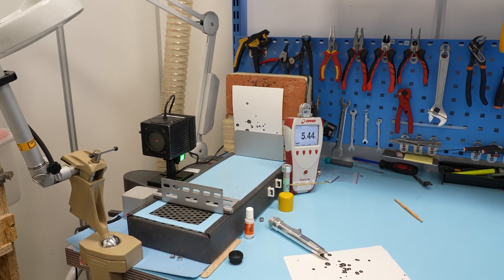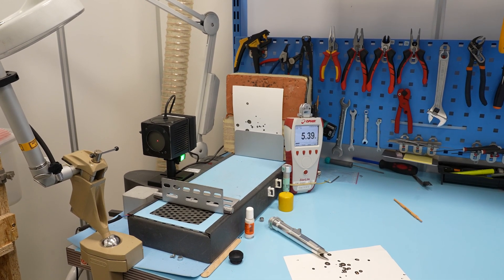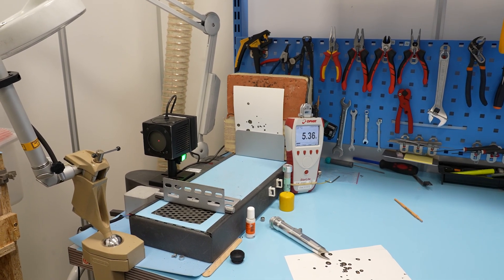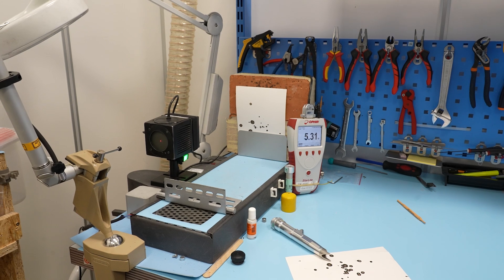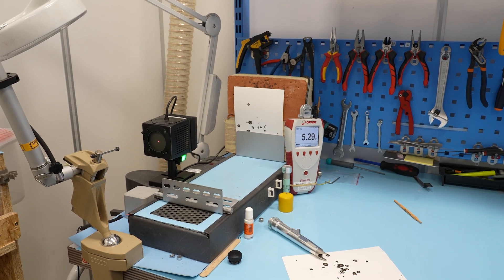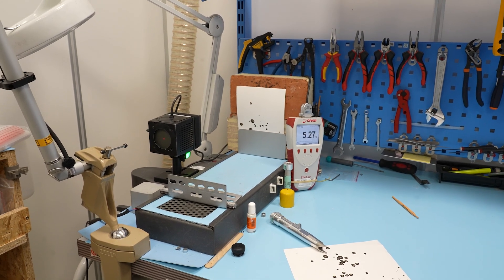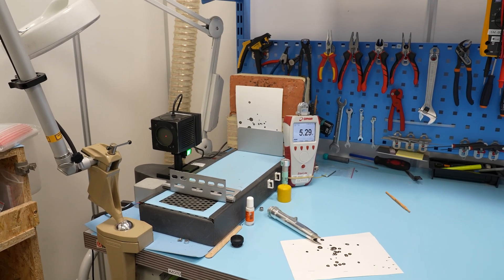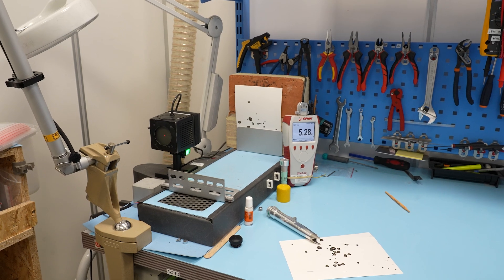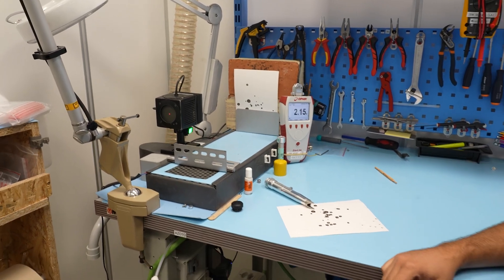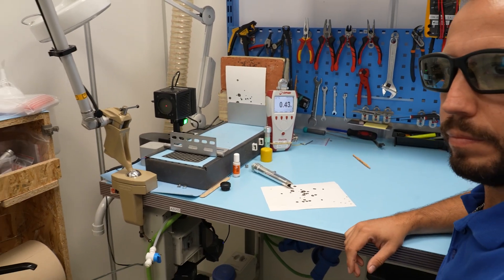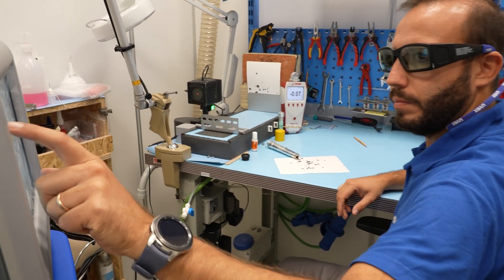We make sure that the power set into the system is the same that the instruments verify in the power meter.